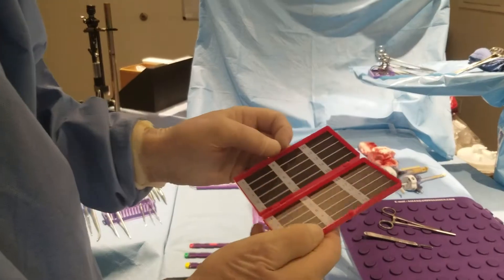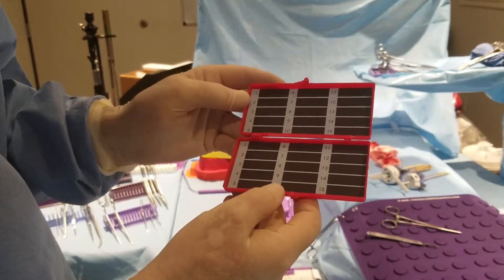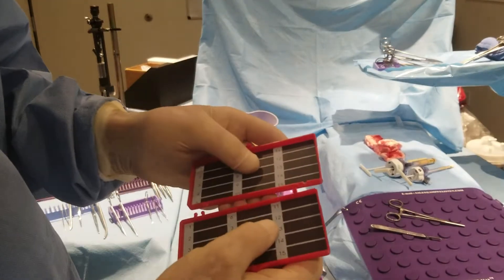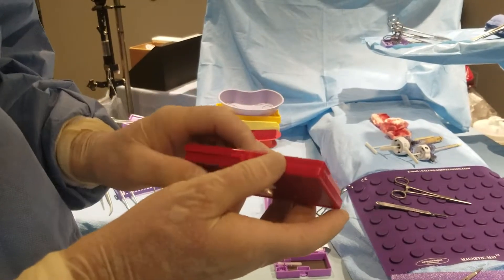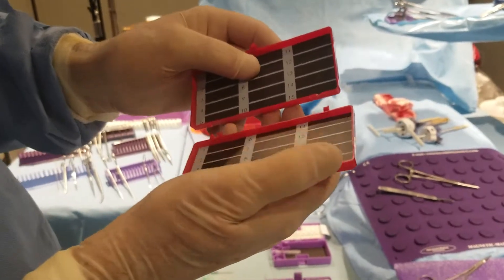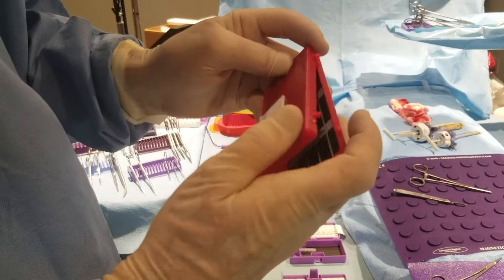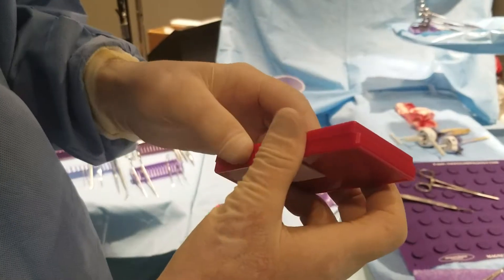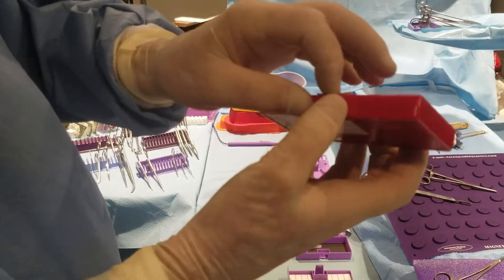The next generation was two red top and bottom and two magnets, but the box remained the same, leaving hinges — regular ball and socket hinges — and a friction-clasp closure. If you take it apart, there's a tendency to break one of those balls. As you can see, this happens to break, and when you put it together, this box is no longer functional due to the broken hinge. It just opens up with friction clasps.